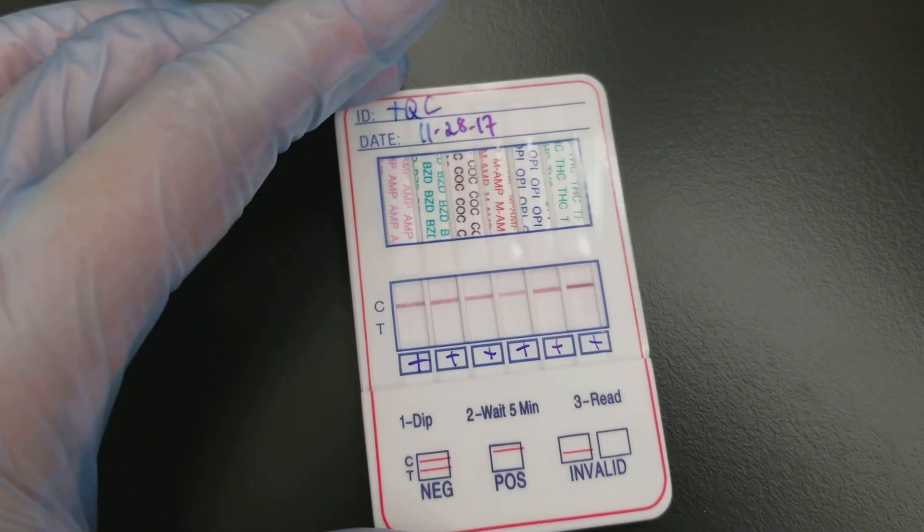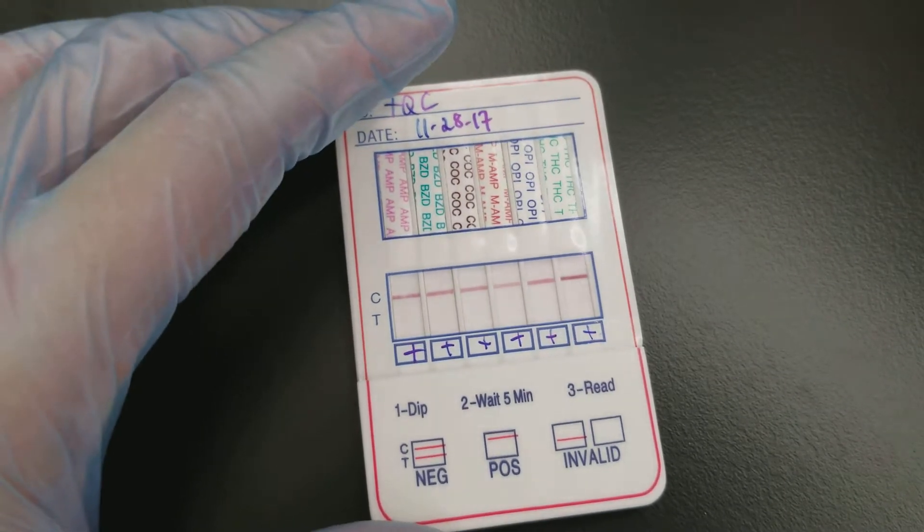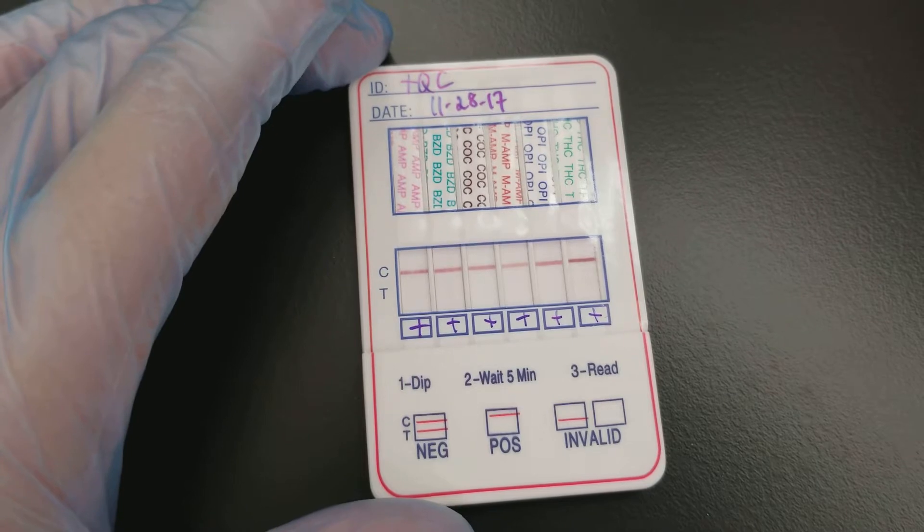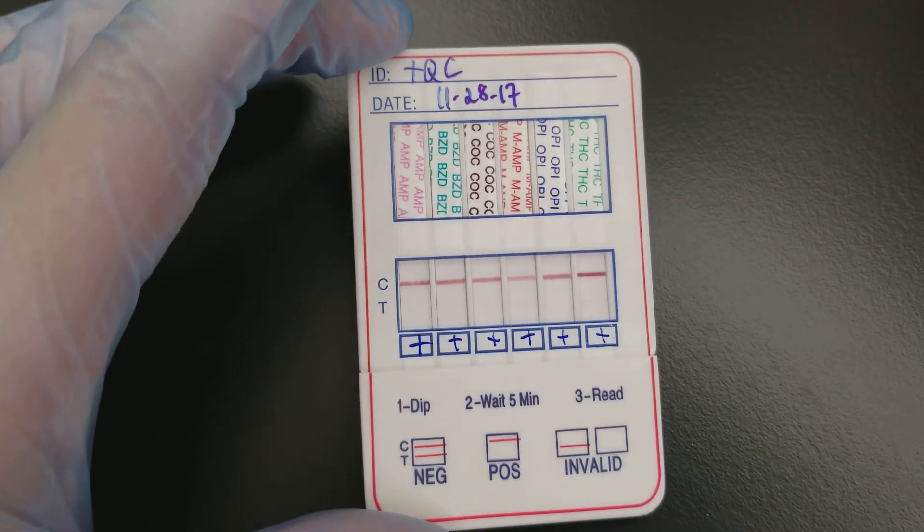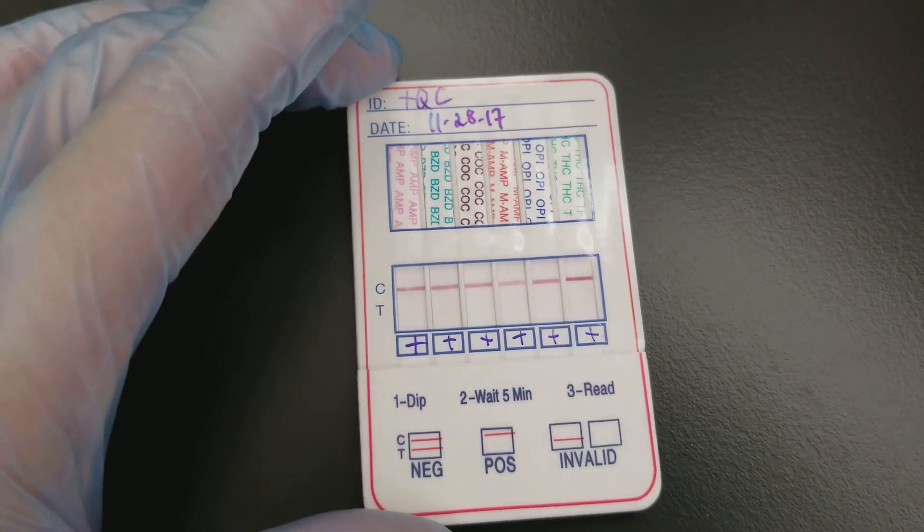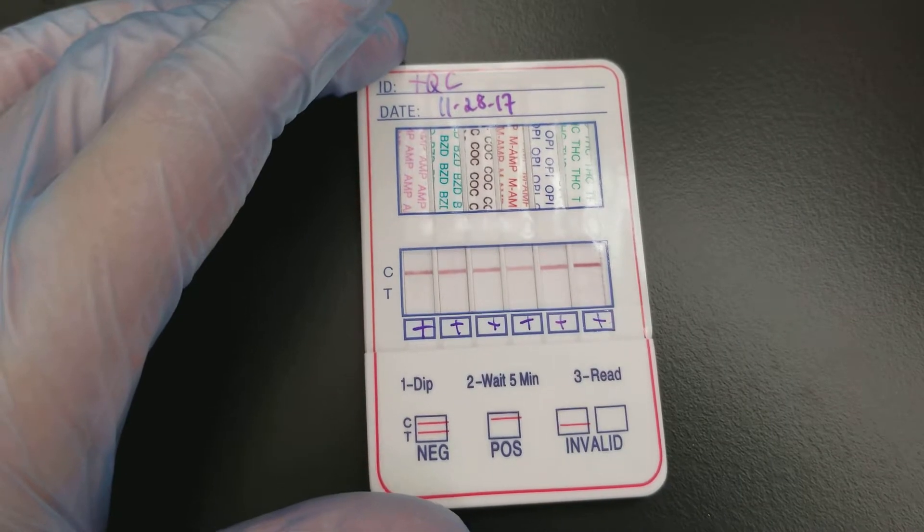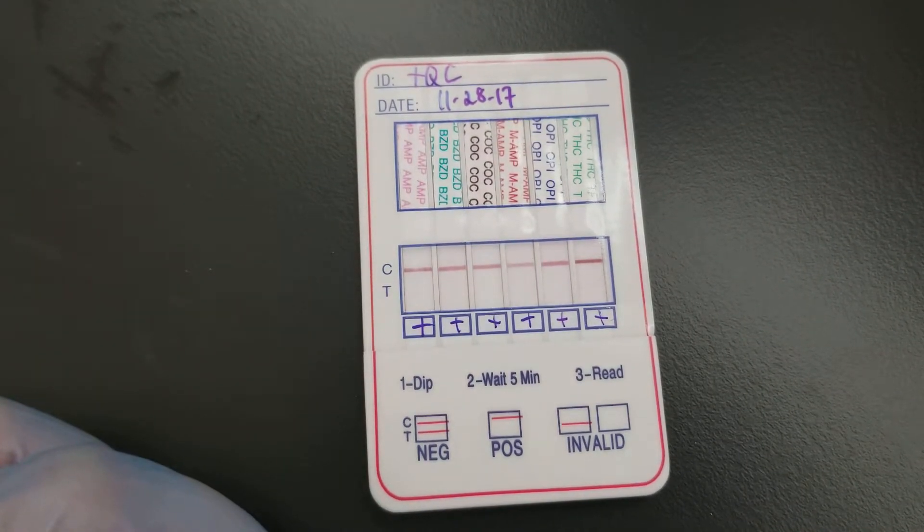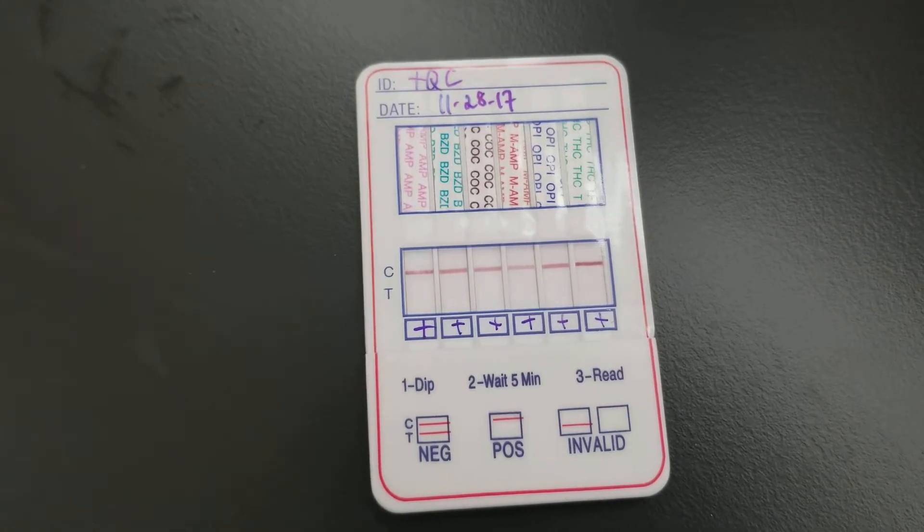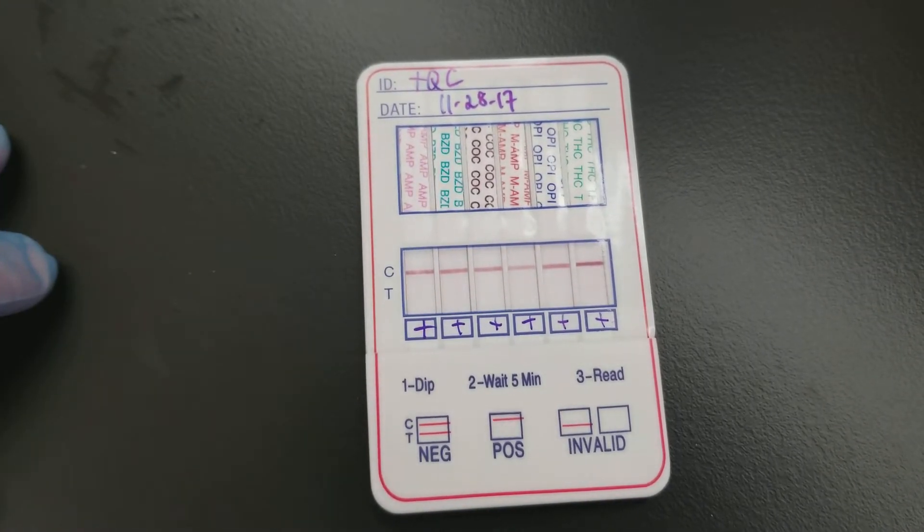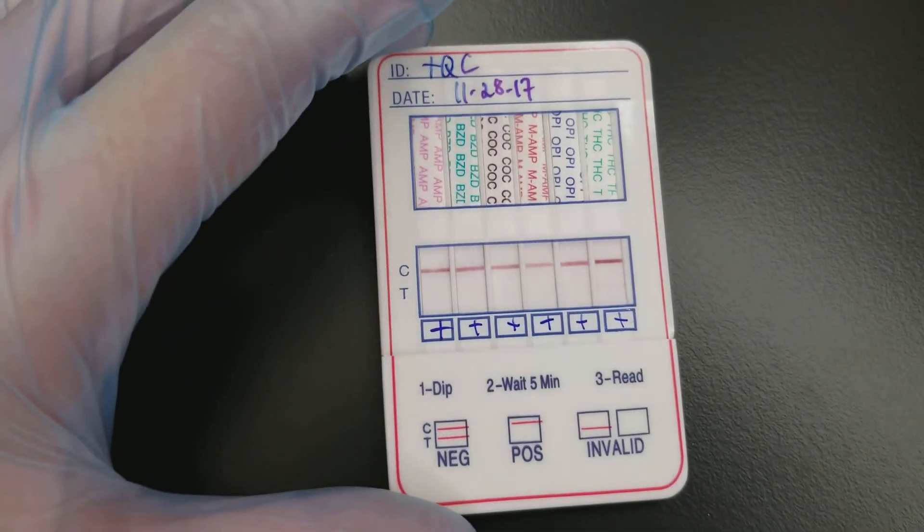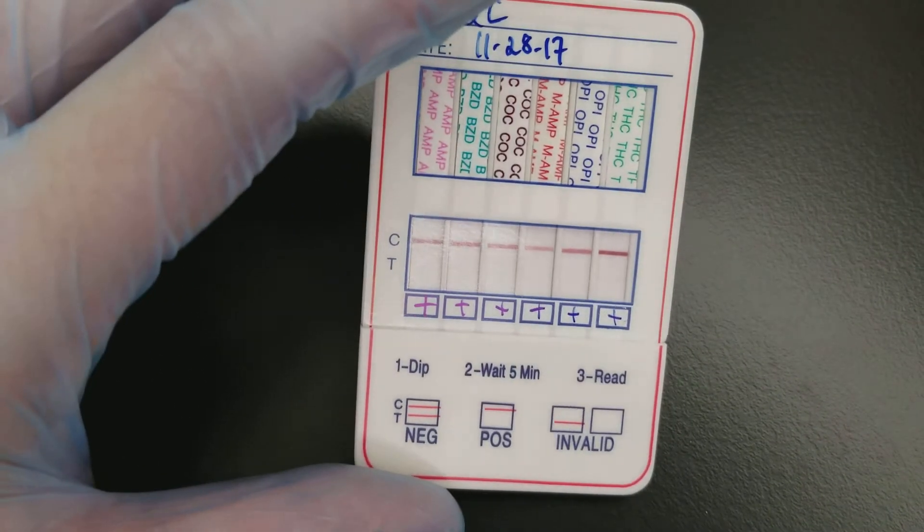This is basically just a little screening card. We use this in class because we don't have an analyzer to do the blood or urine testing that is more sensitive. There are liquid chemistry tests that are performed on large, higher volume chemistry analyzers. This is just a screening test.